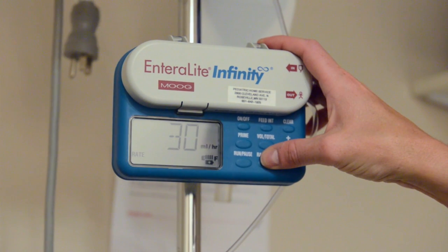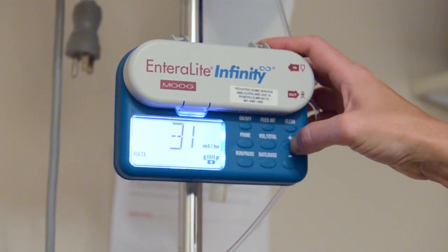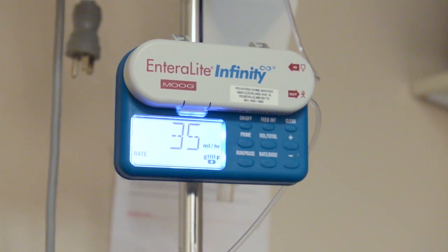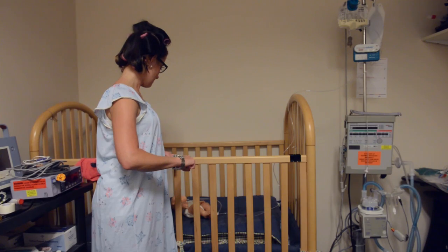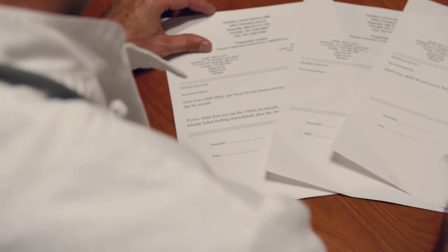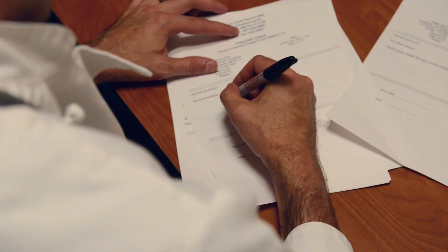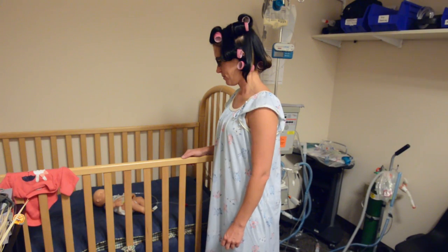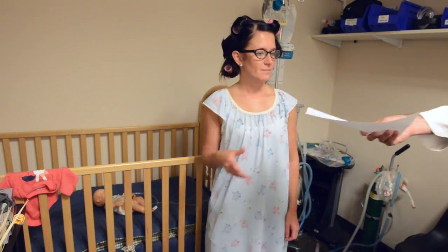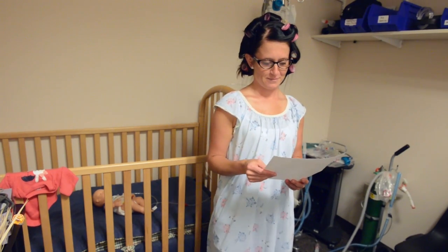Your child uses a food pump for all or some feedings. Your child's feeding needs can change over time. When your child's feeding needs change, the doctor writes new directions for your child's food intake. The doctor can give these directions in a number of different ways and might not give you information you need to set your pump. We will show you how.